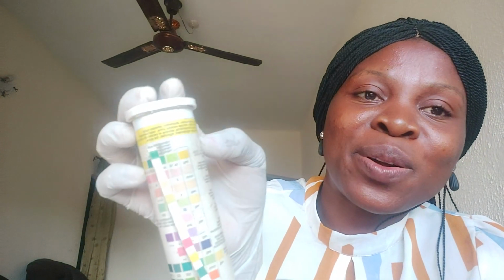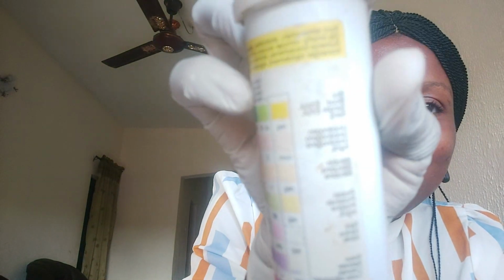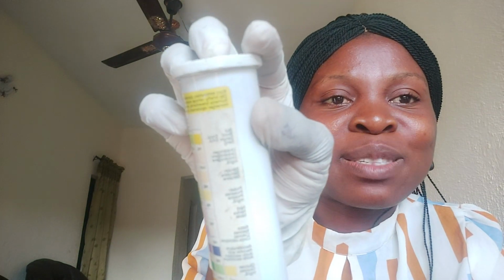Then the last one, which is the one on top, the normal one should be yellow, but it's not yellow. It turned not even light green, not even the next one. It matches the third one. Yes, this is blood that we just examined. The last one we did is blood. So this urine contains blood.